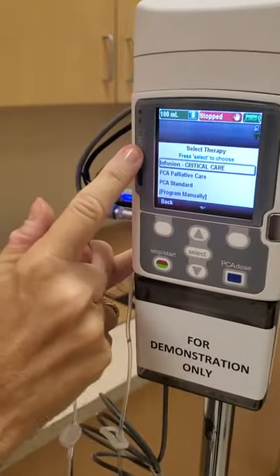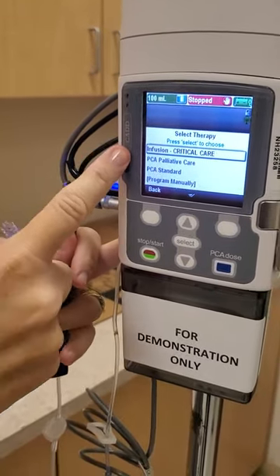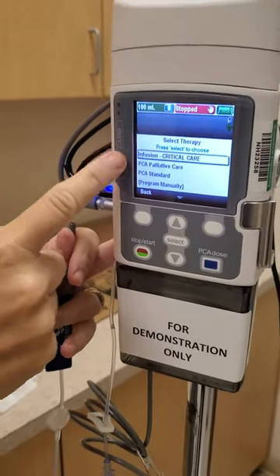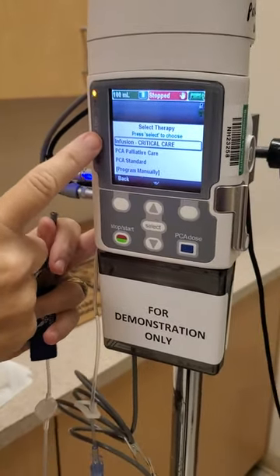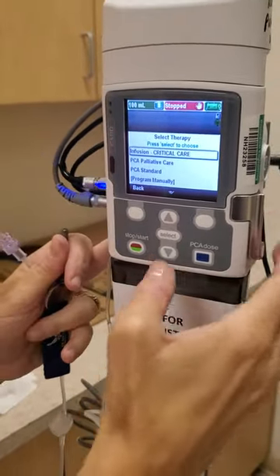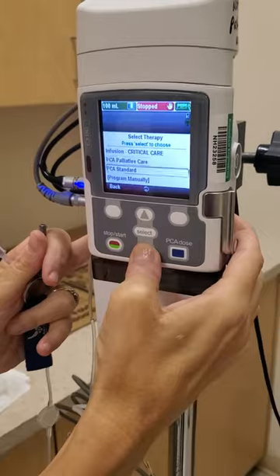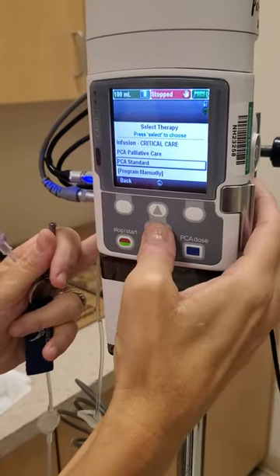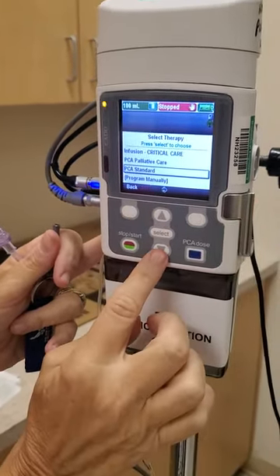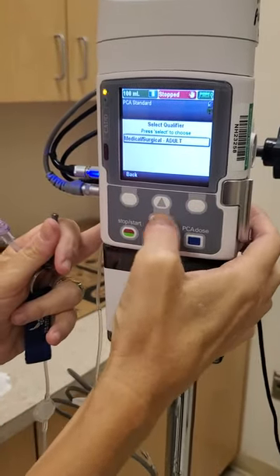It then asks me to select the therapy I want. Depending on where I am working and where I'm starting this infusion, I would choose critical care, palliative care, or PCA standard. For demonstration purposes, I'm going to select PCA standard — I've highlighted it with the middle key and I'm going to select it.